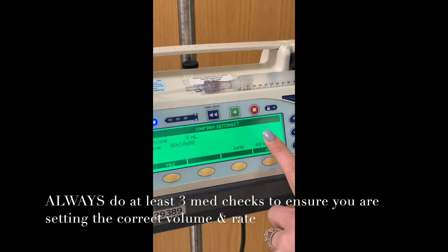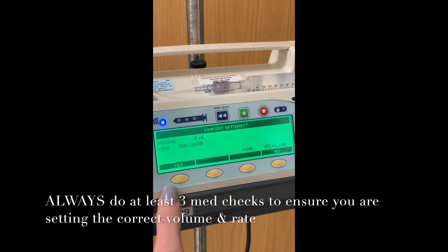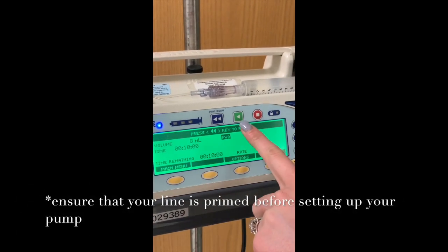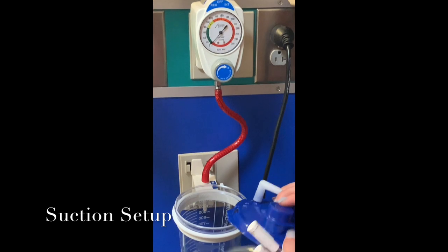Enter. It'll ask you to confirm one more time. We want 8 mLs over 10 minutes. It gives you then the rate in milliliters per hour. We click yes, and then press the green button to go. And that's it.